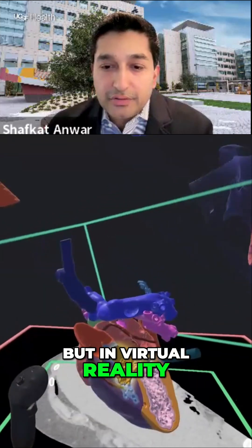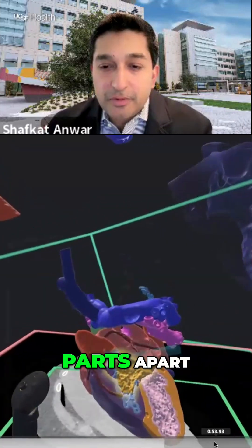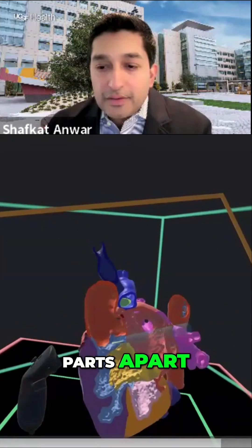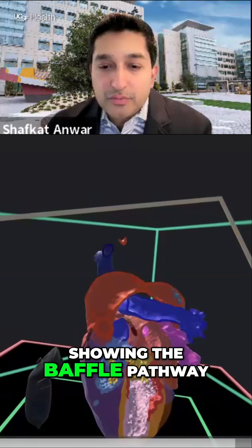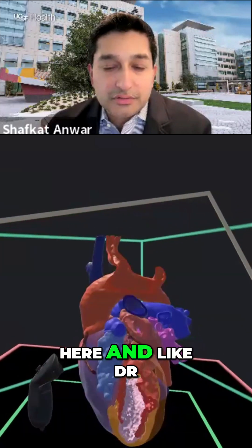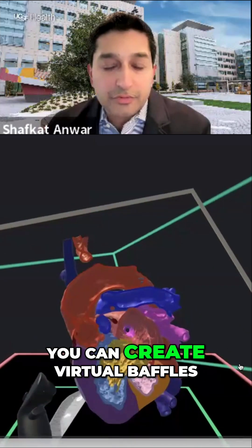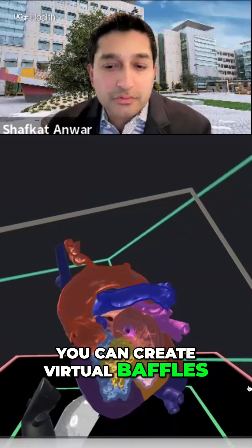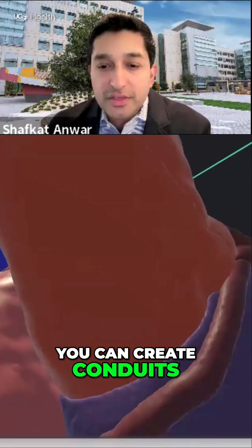In virtual reality, you can just take each of the segmented parts apart. And then, again, showing the baffle pathway here. As Dr. Ashwat said, you can create virtual baffles and you can create conduits.